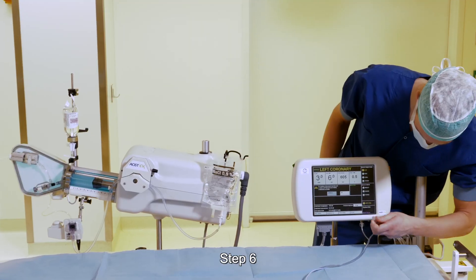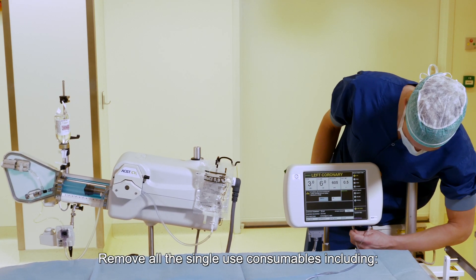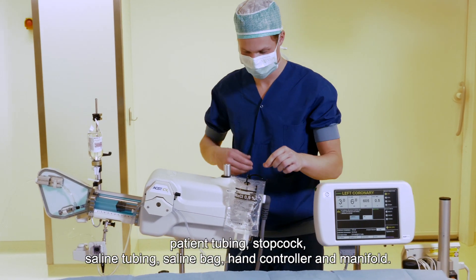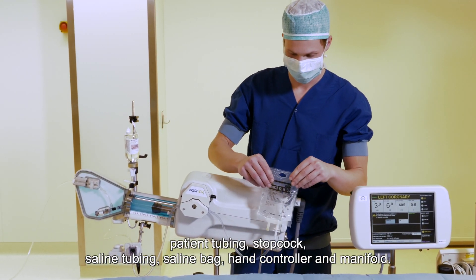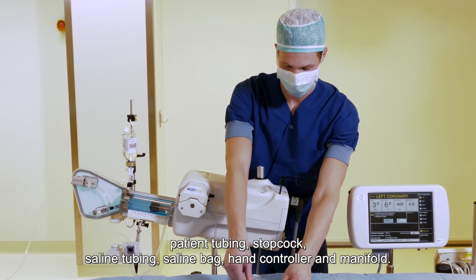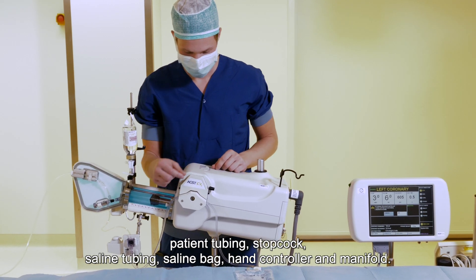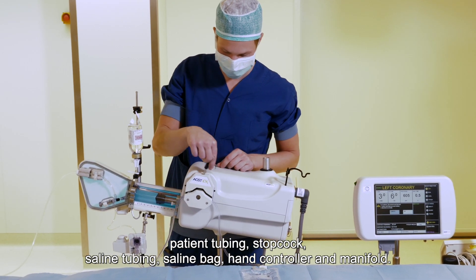Step six: remove all the single-use consumables including patient tubing, stopcock, saline tubing, saline bag, hand controller, and manifold.